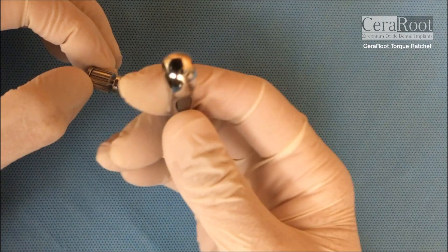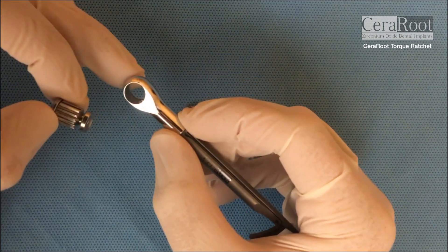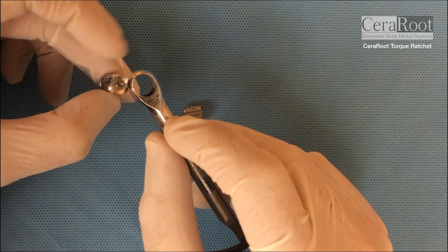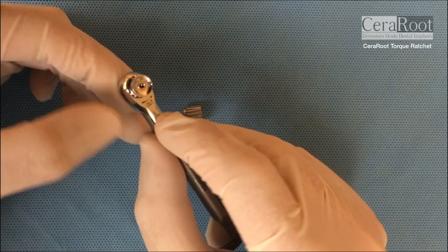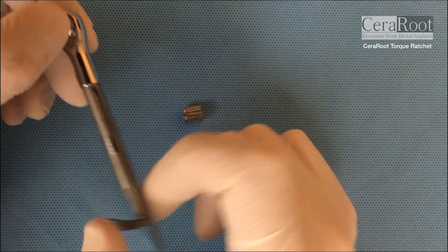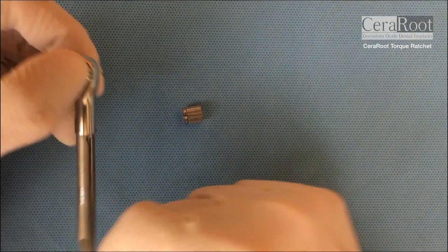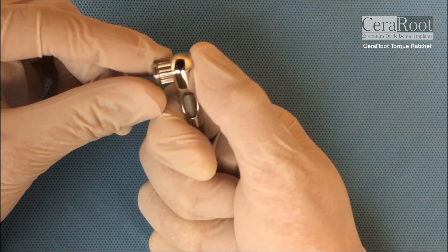To release, push down. If you want to unscrew, you have to read the word OUT. Then again you bring the wheel from below and you push so it doesn't fall off, and you go ahead and screw. To release you push down.